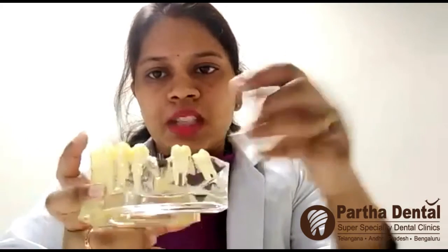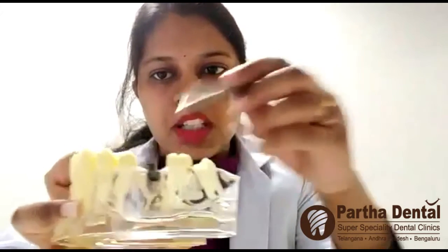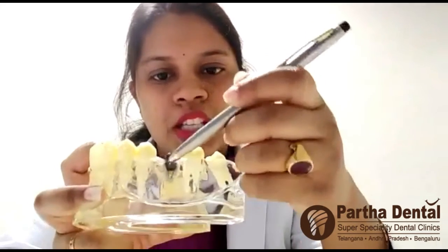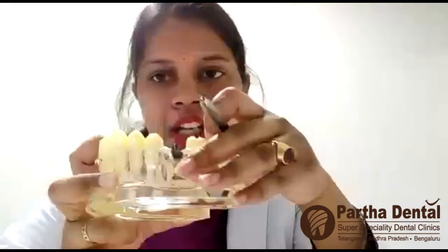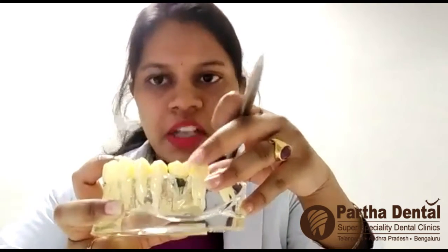There is another option for replacement of teeth. Suppose there is only a single missing tooth — this is the area wherein only a single tooth is missing. For this type of case we can place an implant inside the bone. This is a titanium screw which will be placed inside the bone. We would wait for 3 months for the implant to osseointegrate in the bone properly. Then after 3 months we will place a permanent cap, and till then, just for chewing purposes, we will give a temporary cap.